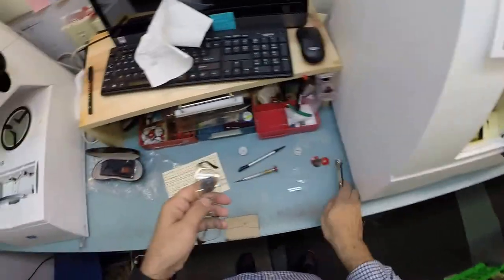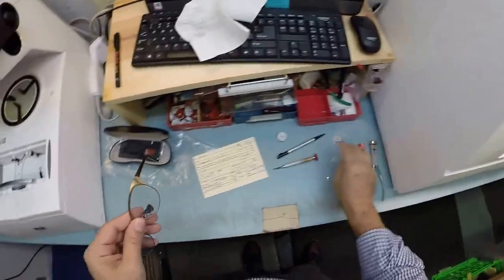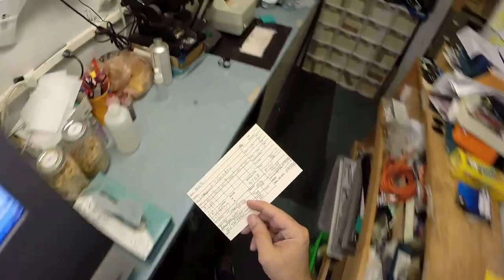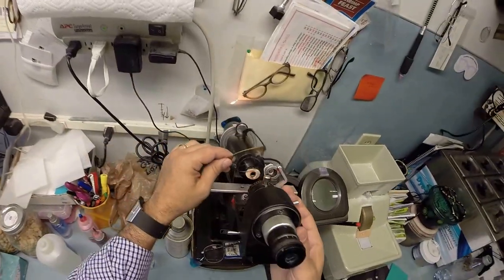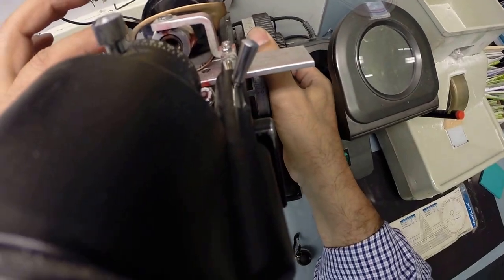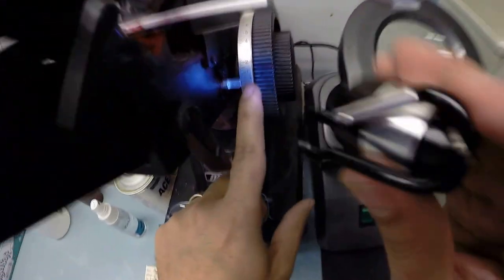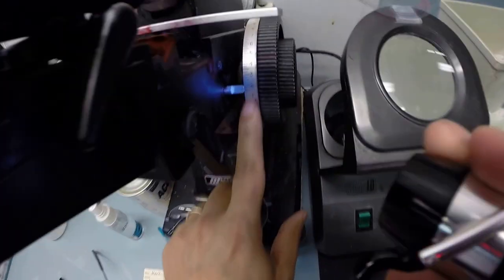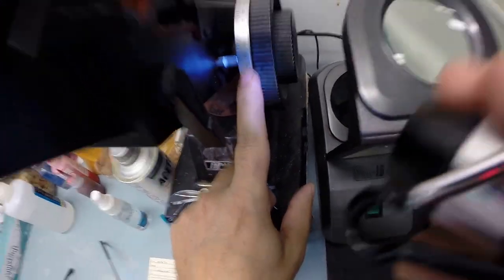Let's go ahead and take this block off. We can come down here and measure again. Make sure to check the left lens. Check the power. Make sure that is clear, true, no prescription. Let's check the... I don't take my word for it. Zero. Again no prescription, Plano. Check the bifocal strength and we are getting plus 150 exactly halfway between one and two. Now your pupillary distance, your near pupillary distance is 58. I'm going to place my PD stick against the inside corner of your bifocal lens and then when we measure on the left hand side, let me put the card there so you can see, and we're getting 58 millimeters so that is cut perfectly.